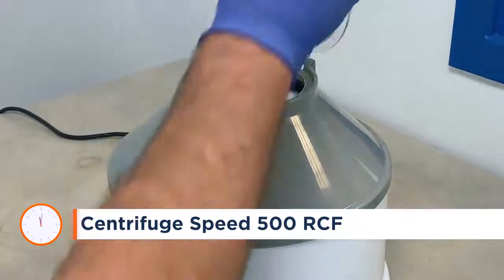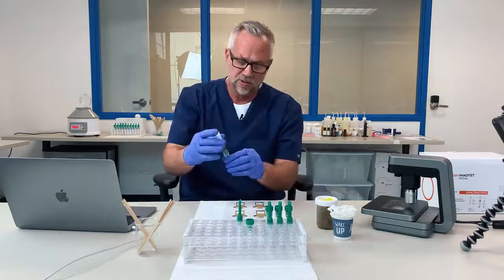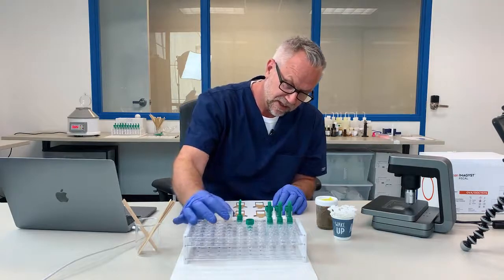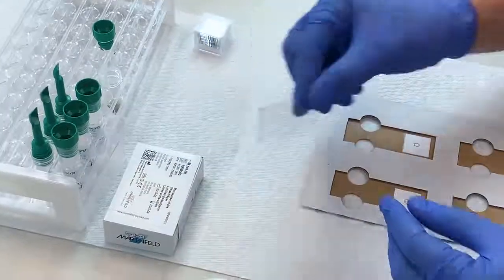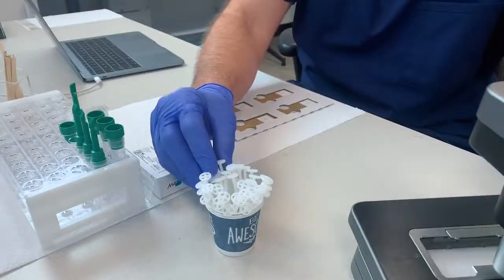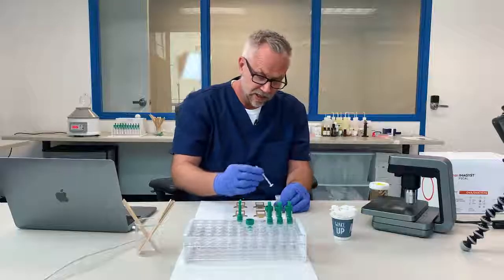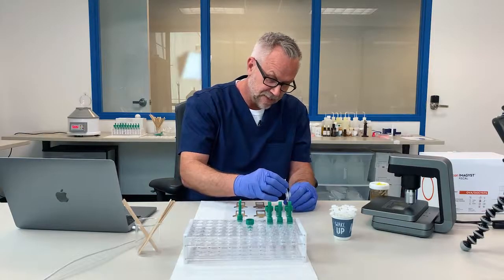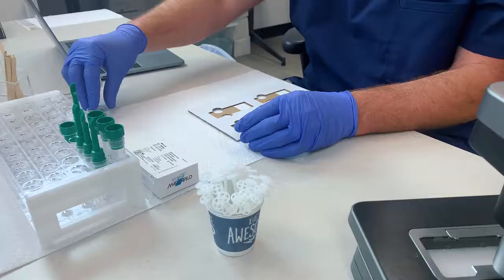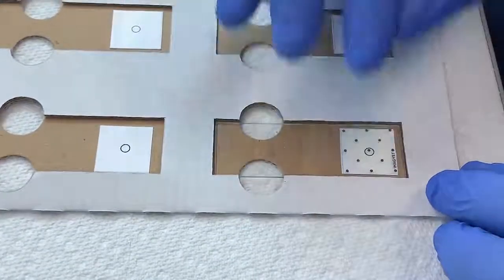Once our centrifuge is finished, we're going to bring that sample back over. You can see right here, we're going to unscrew the collection tube, and that's our sample right there. I'm going to place that in the rack. We're going to take a glass slide and place that in the template. I'm going to grab a transfer loop in the sample, and we're going to draw some material off the top, place that on the glass slide. We're going to grab a cover slip, place that on the slide, and that's it — the slide's ready.